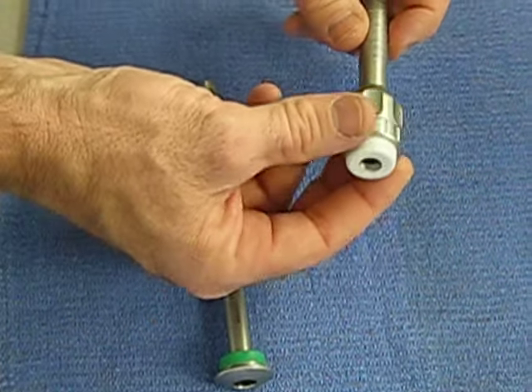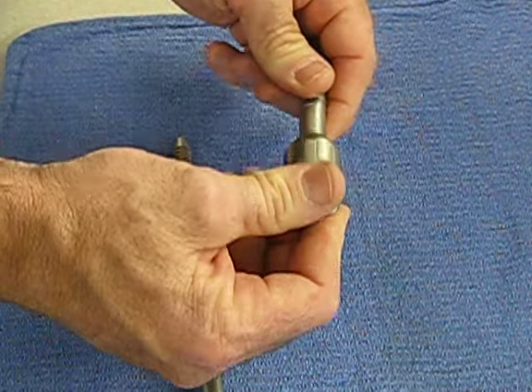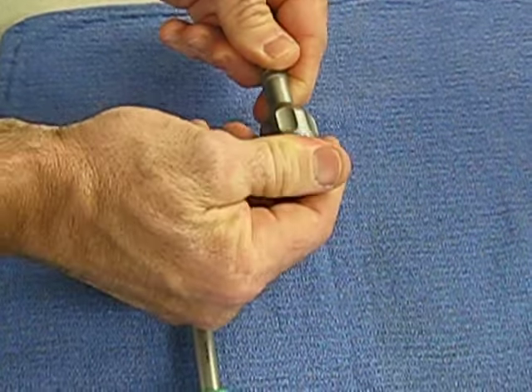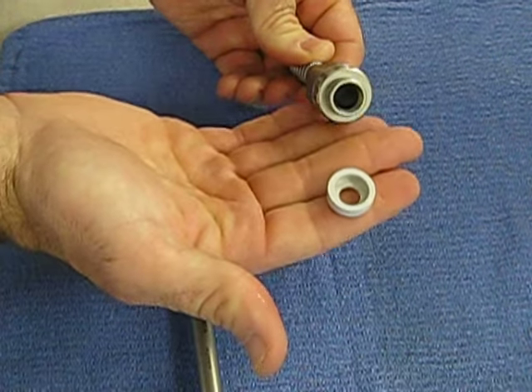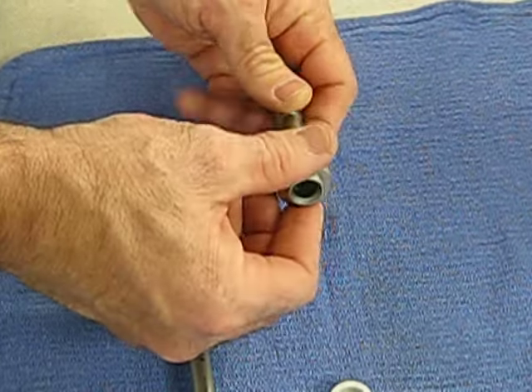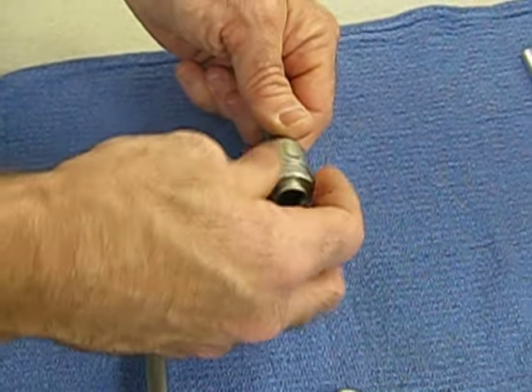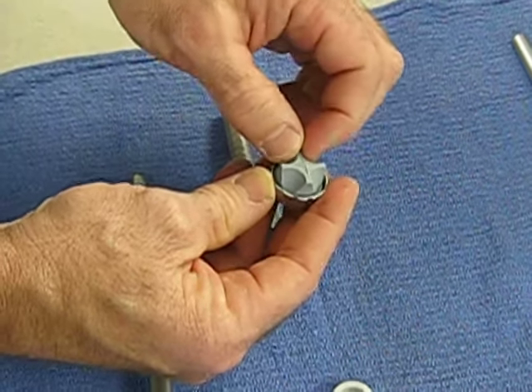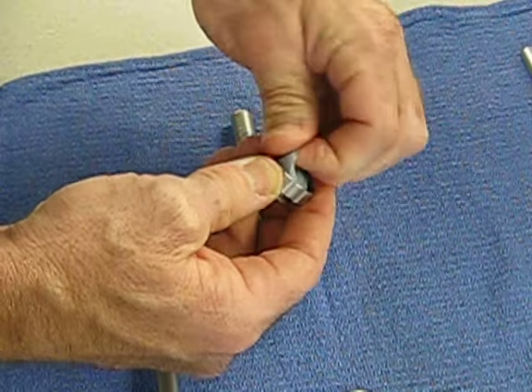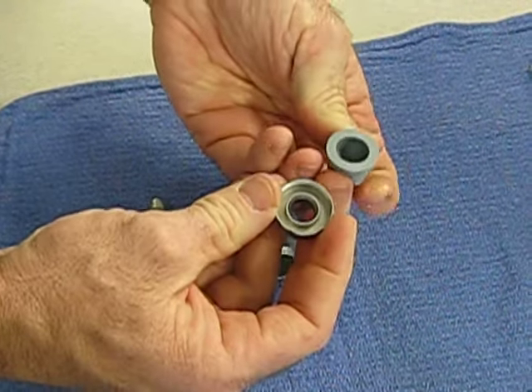There are four parts to this cannula. If you pull off this white cap, you want to make sure that's cleaned underneath and dried before putting it back on. Then you unscrew the valve, and inside there there's a silicone leaflet valve.